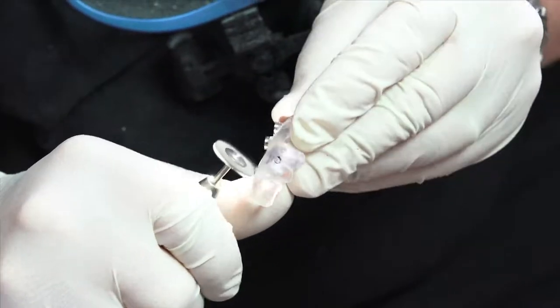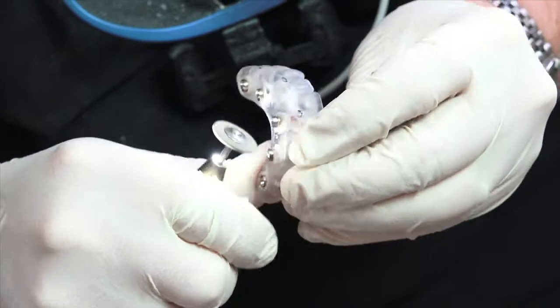Use a stiff bristle brush and/or a rubber point to smooth and blend any sharp edges.